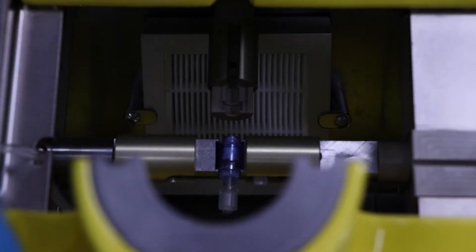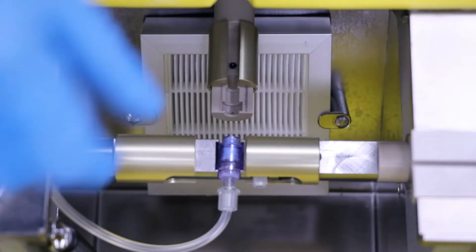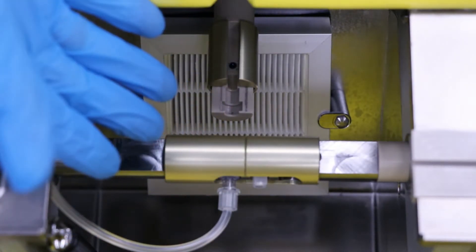Additionally, a dedicated laminar flow class A vented area allows for sterile syringe connection and filling.